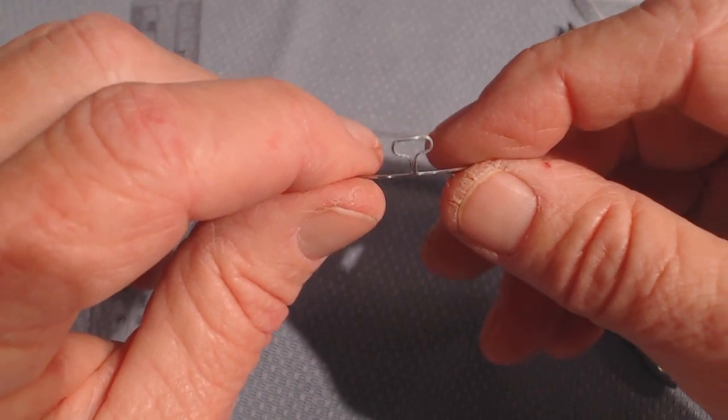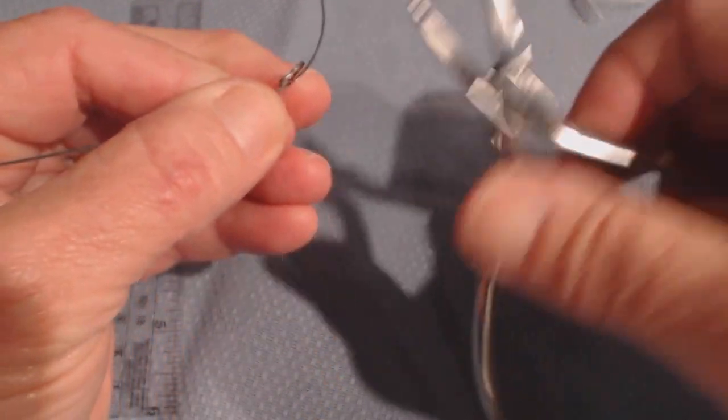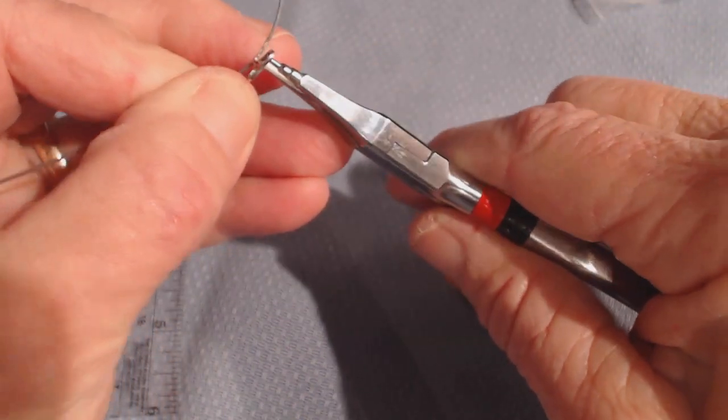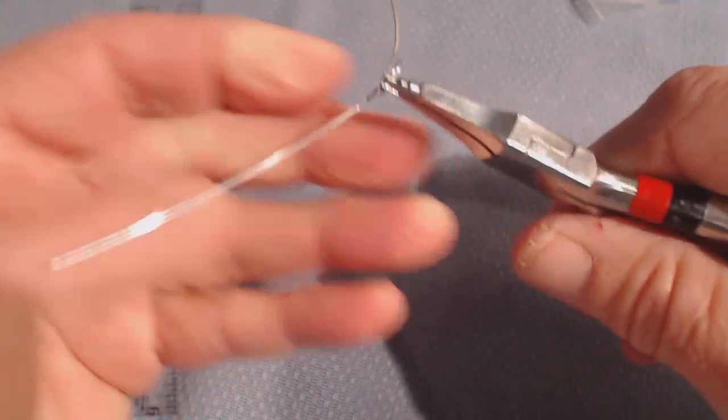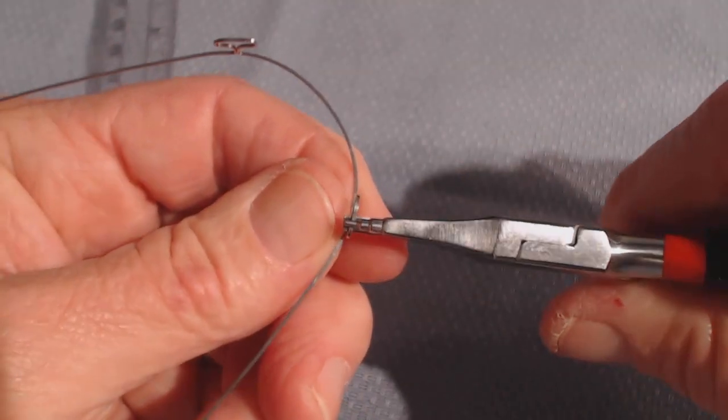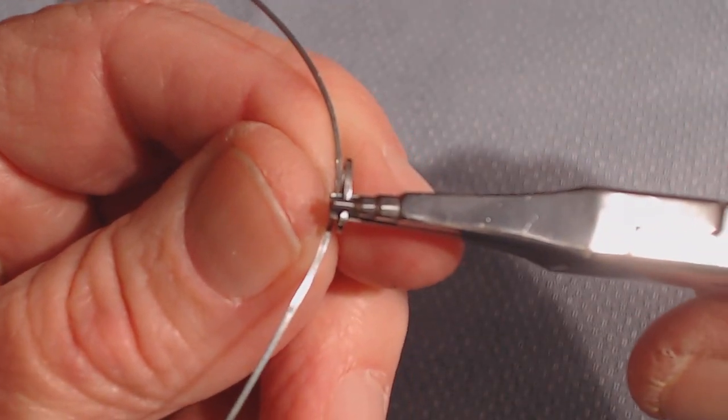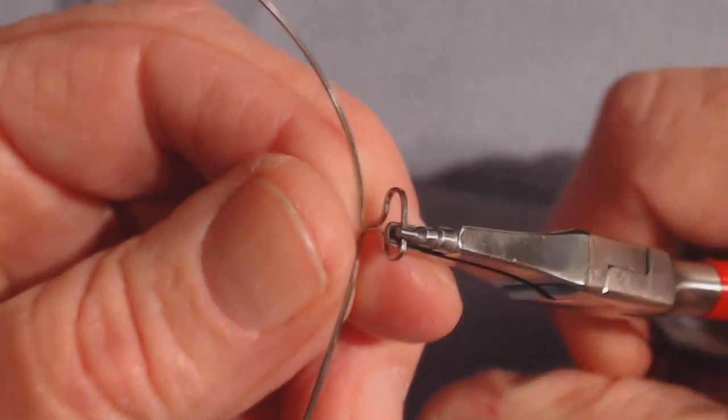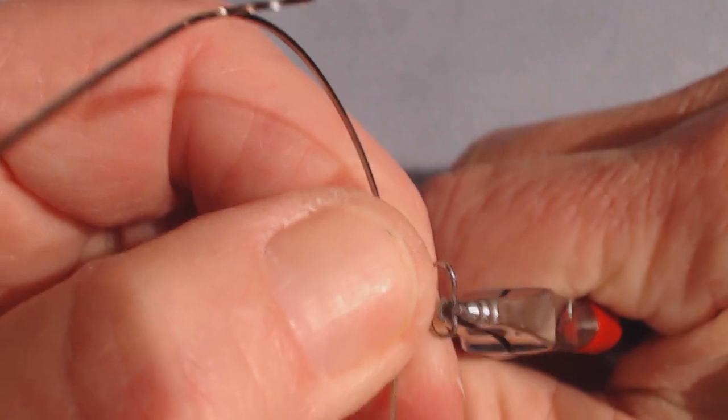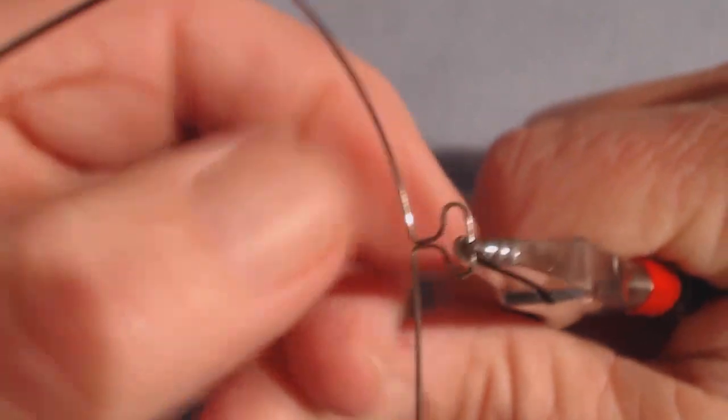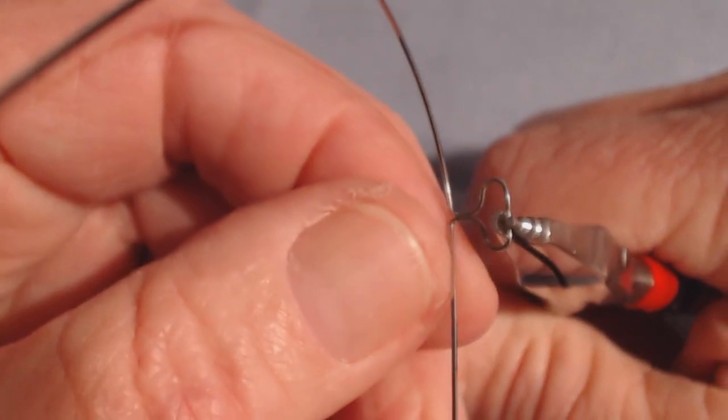Remove the wire to do this, and place the plier right next to the distal aspect of the loop. I've got the single-beak side on the top and the double-beak side on the bottom. Back it up right into this radius on that side, but don't fall off the radius—don't go down in here. It's got to stay on the straight side of the wire.